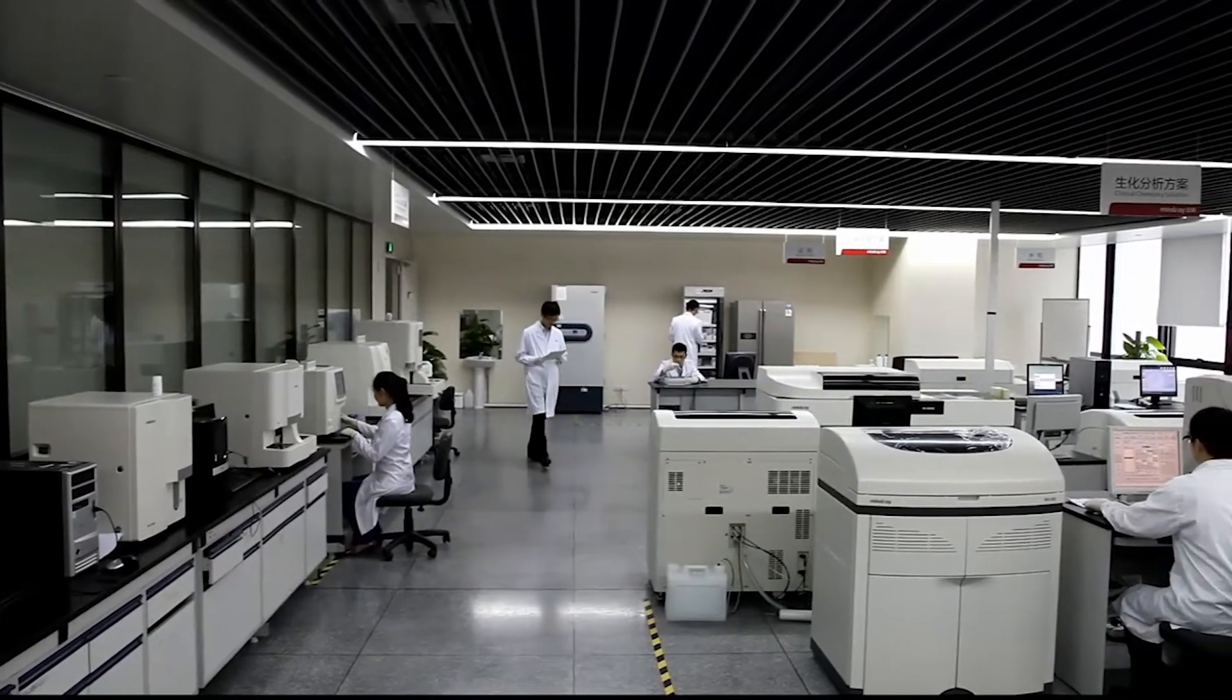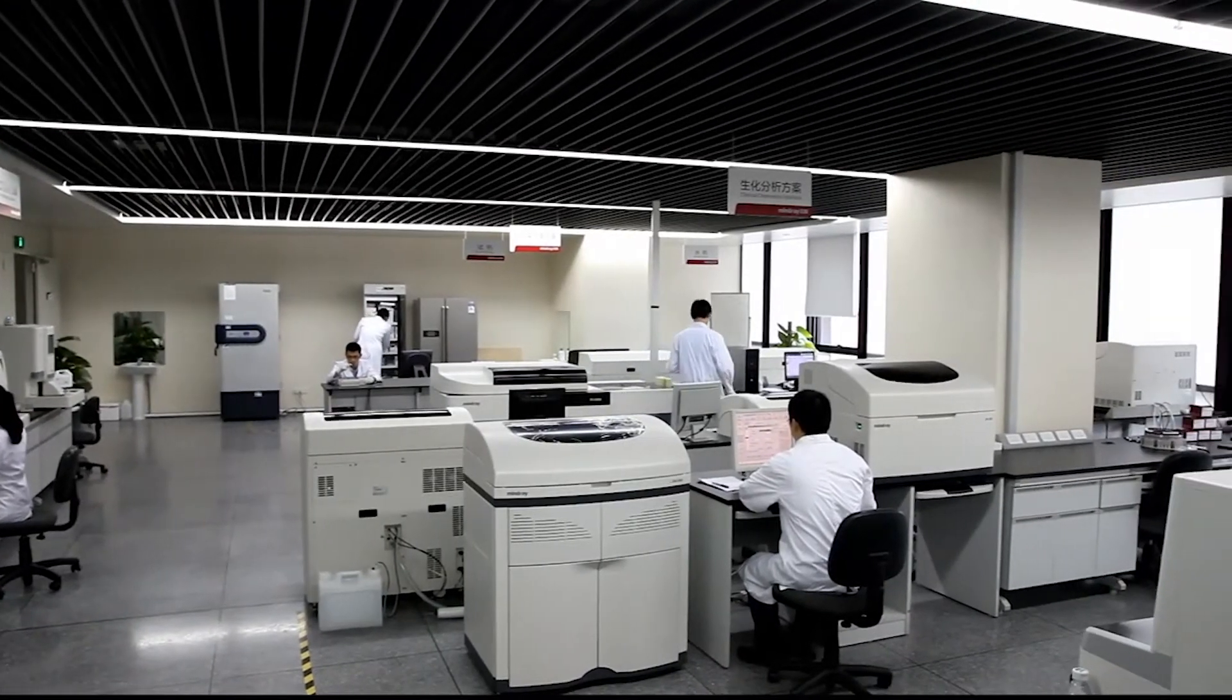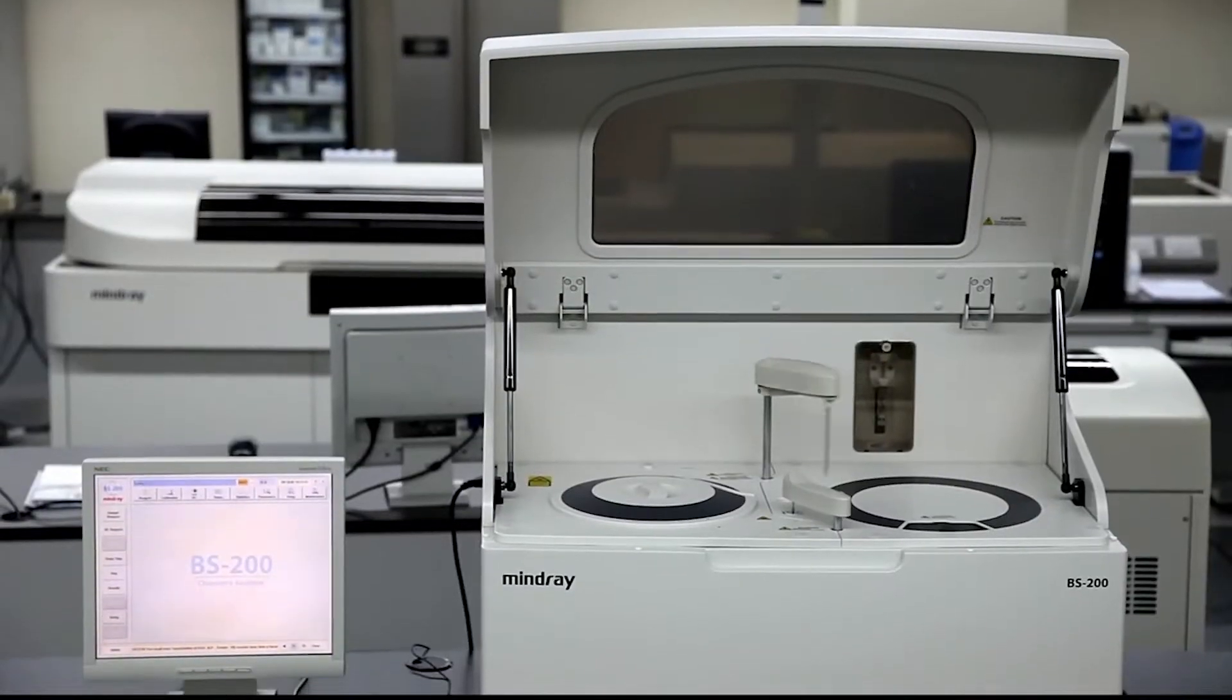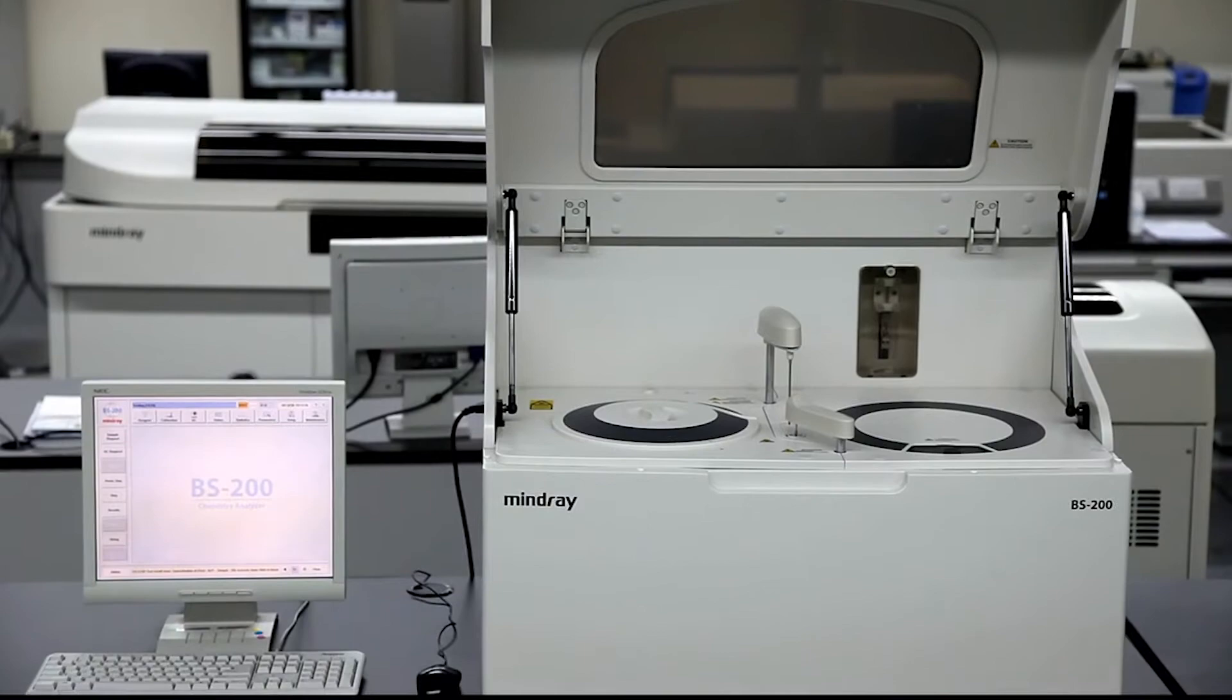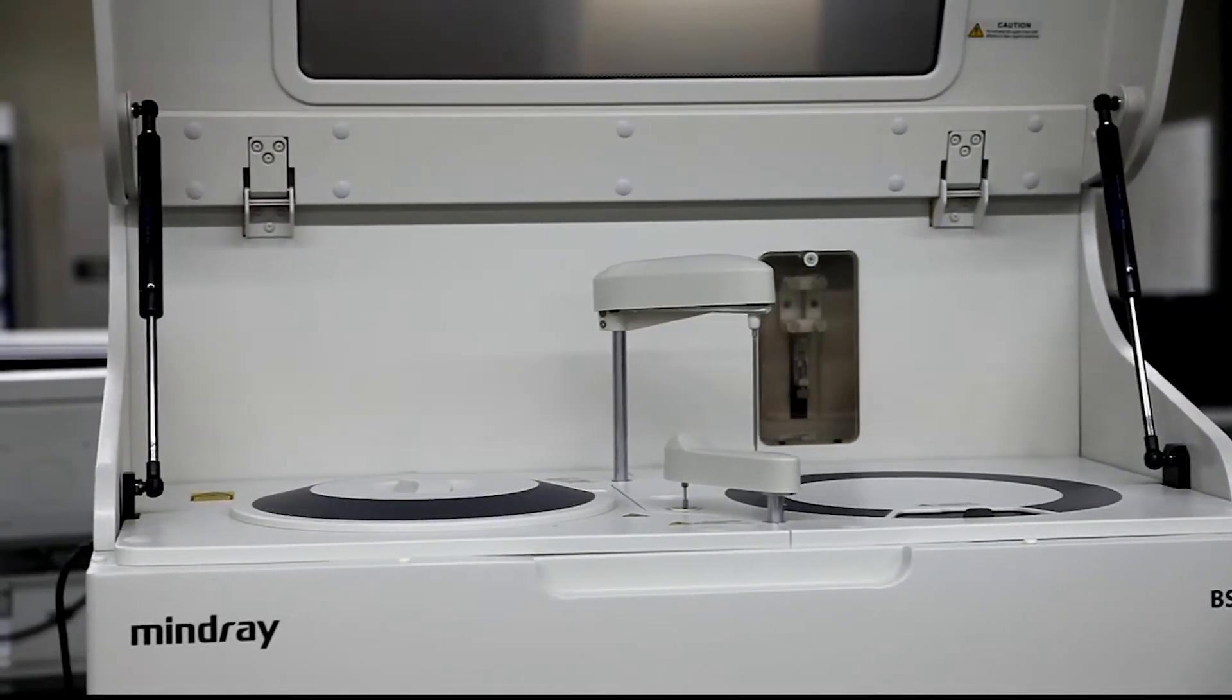MindRay is dedicated to providing the most reliable, most efficient, and hassle-free automated clinical analyzer for the clinical laboratory. The BS200 chemistry analyzer demonstrates MindRay's commitment to excellent instrument design and outstanding operational performance.